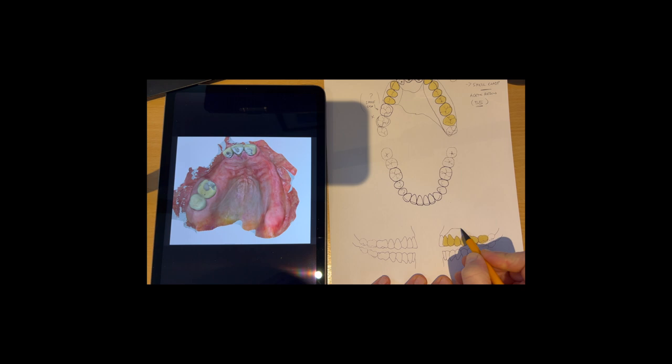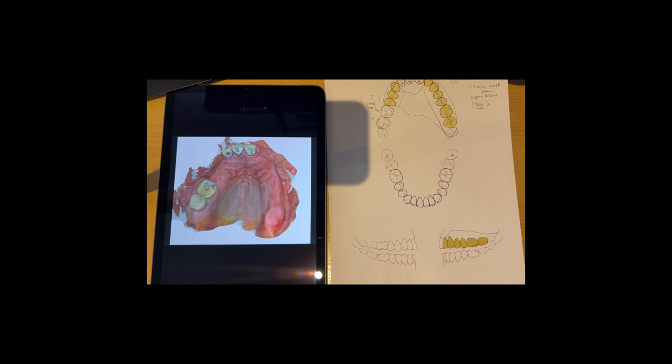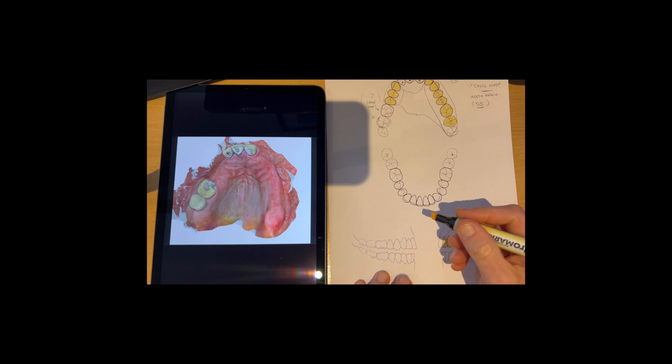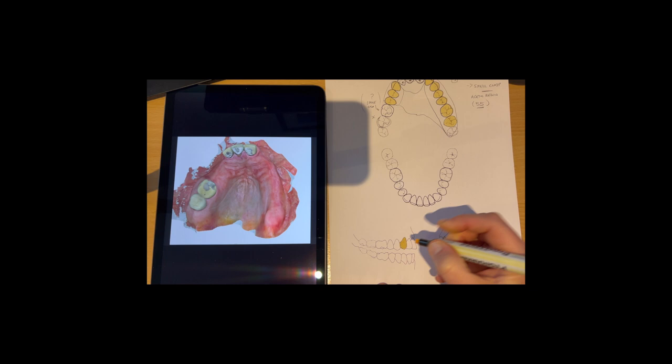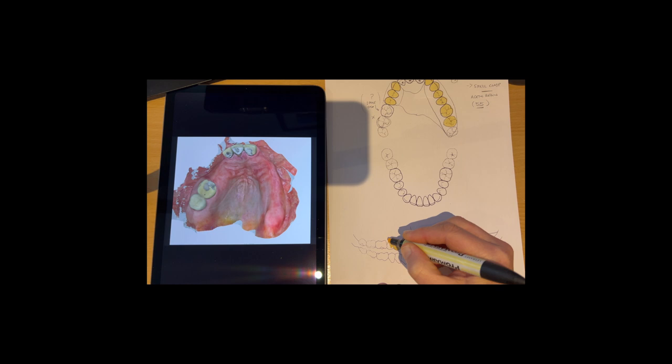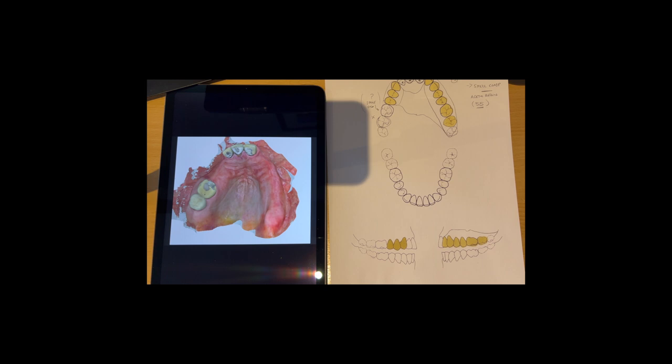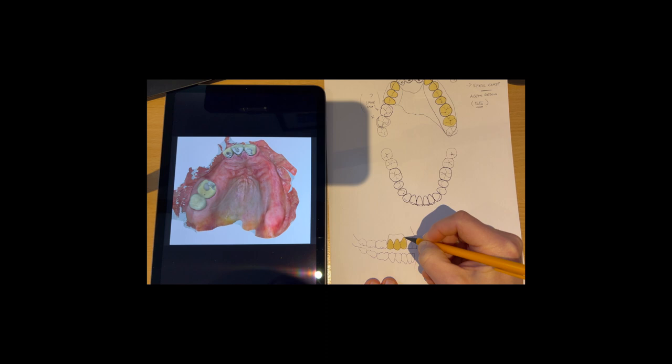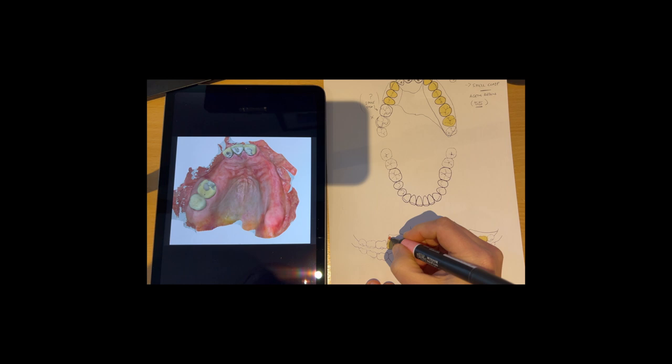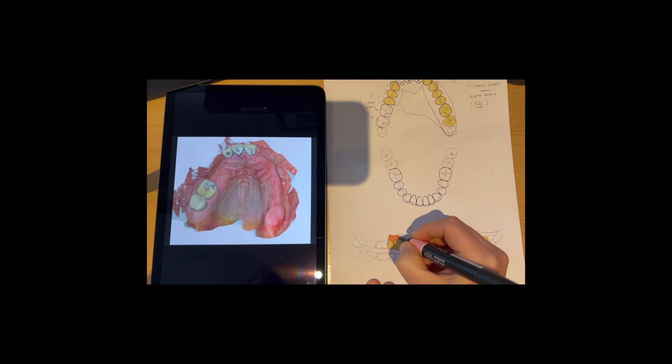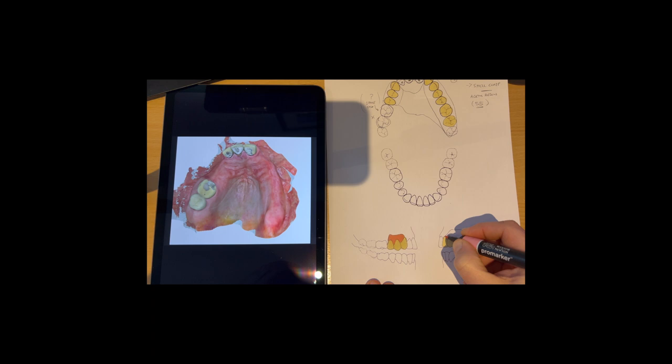I want to extend this all the way back. And then let's have a look on the other side before I color everything in. So we've got one, two, and then three. Nice thin bit of pink there, just keeping it away from the edges of the teeth. So let's start to color everything in. I will put the clasps on just in a second as well. So that's the pink. That's really good.